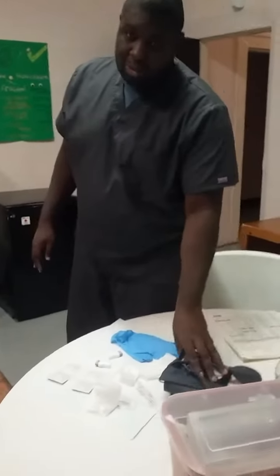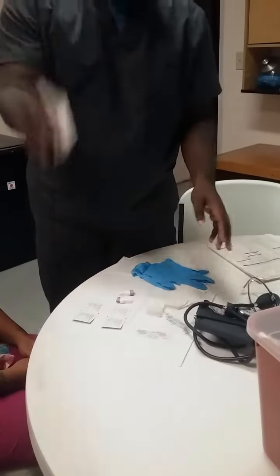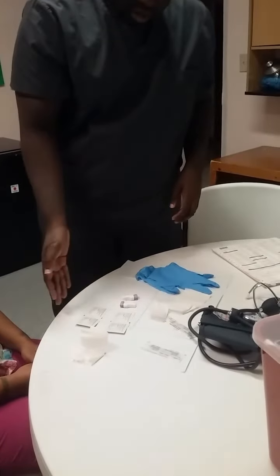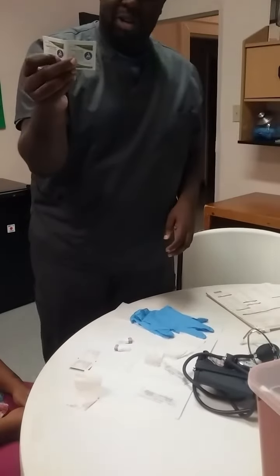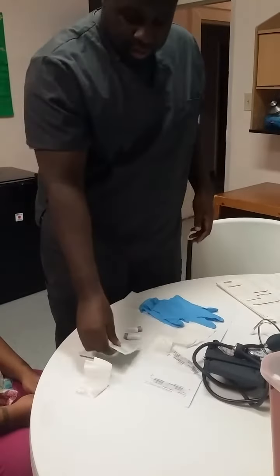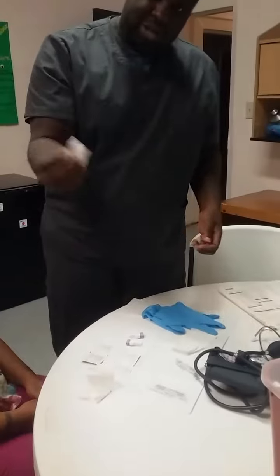Now, the next thing you want to do is assemble all your equipment and make sure you have everything ready for the exam. So for this one, we're going to need a lancet. Grab our gloves, blood pressure cuff, we have our filter paper, band-aids, sterile alcohol pads, 70% isopropyl. That's the standard we use for a lot of procedures such as this. And also we have our gauze. So now that we have everything, we can do this procedure.